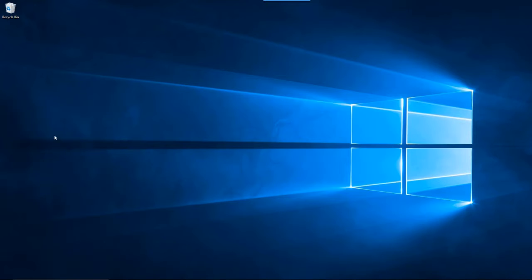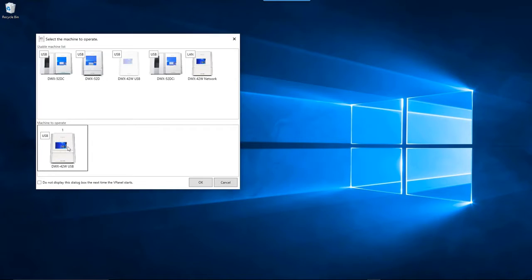Open the vPanel on your computer. When the machine selection screen appears, select the DWX-42W and click the OK button.